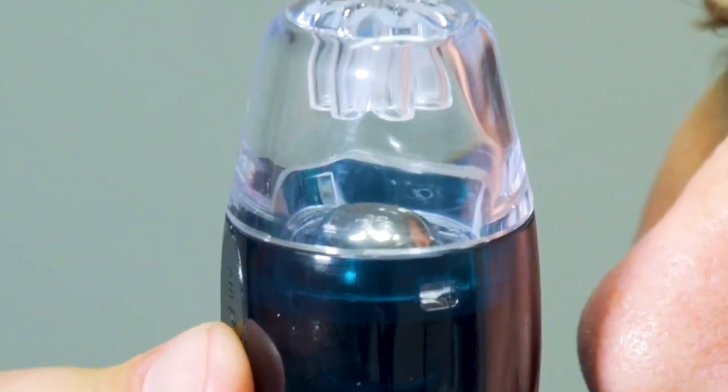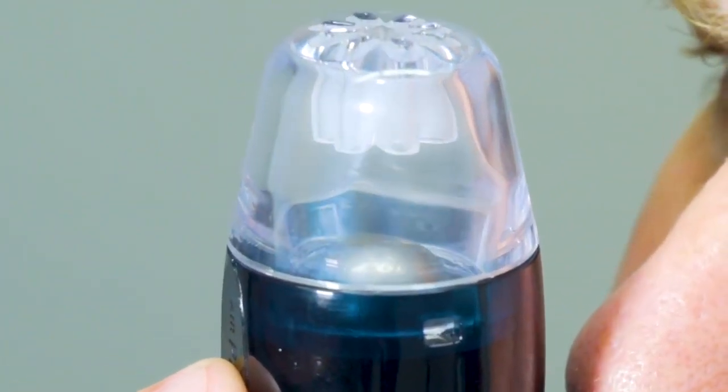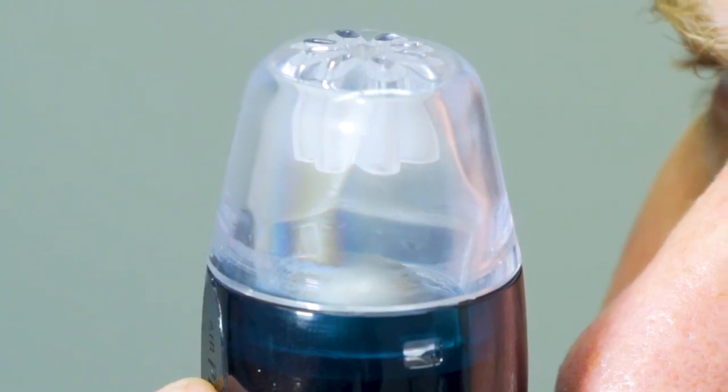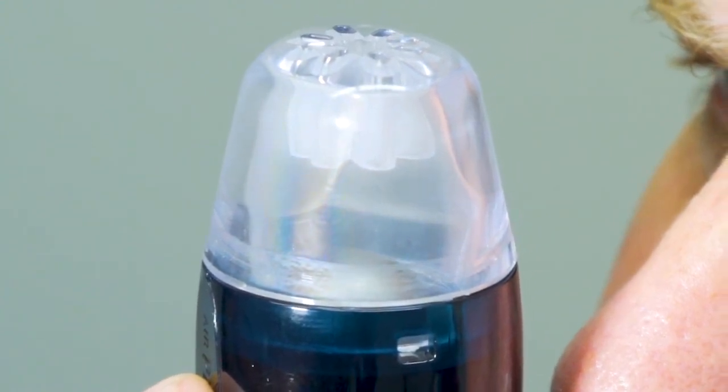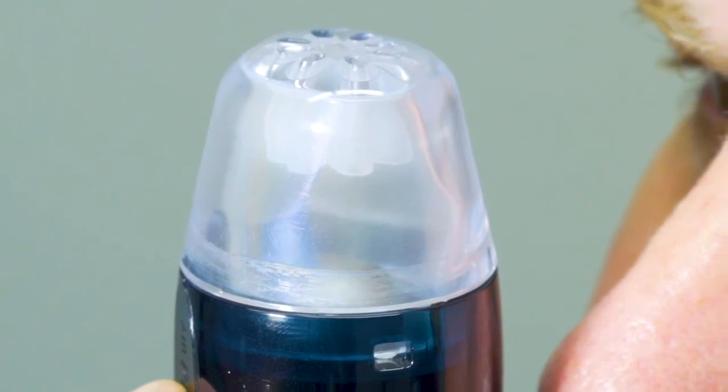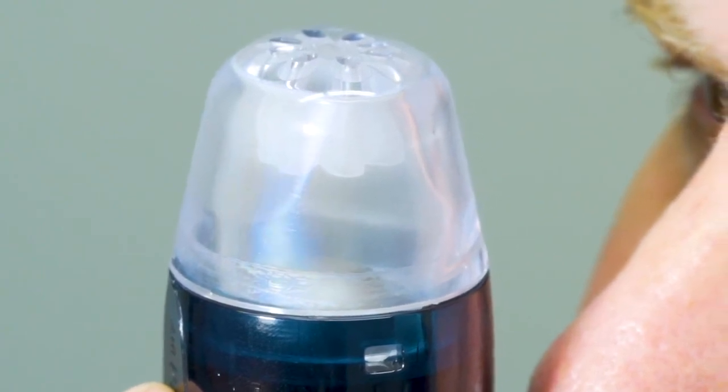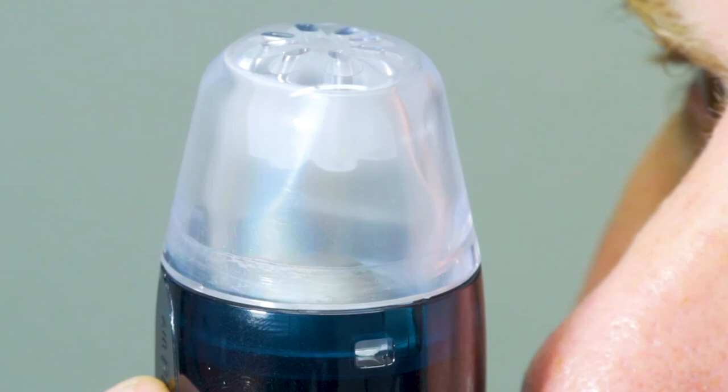Breaking the seal and allowing the air to rush out of the device. The difference is that the Air Physio device creates this process between 15 to 35 times per second compared to a cough which only happens on average every 2 seconds.